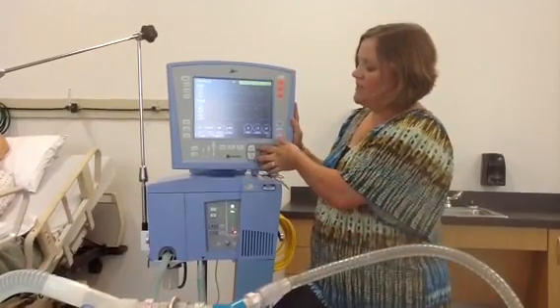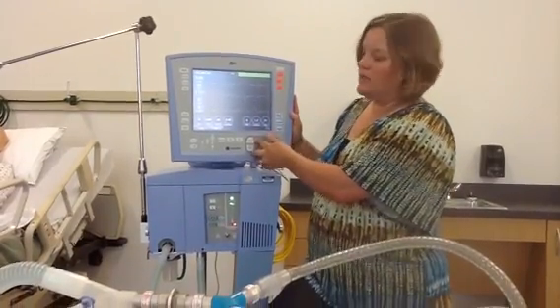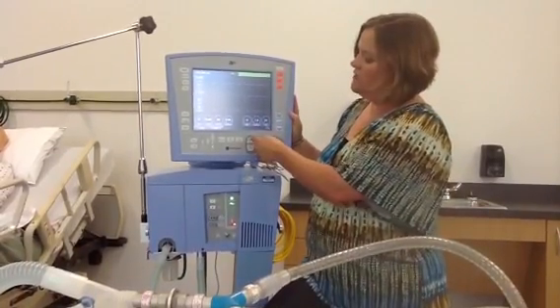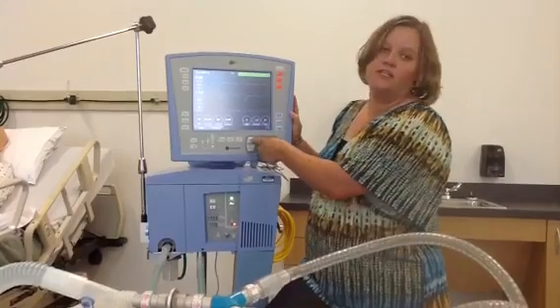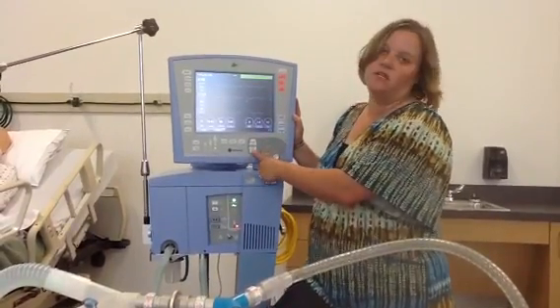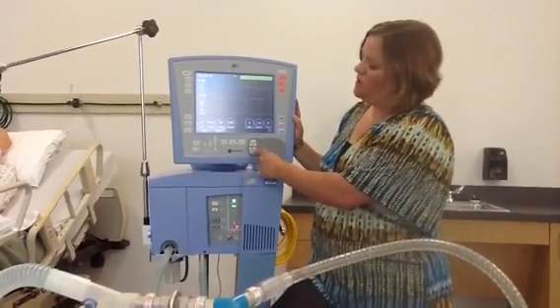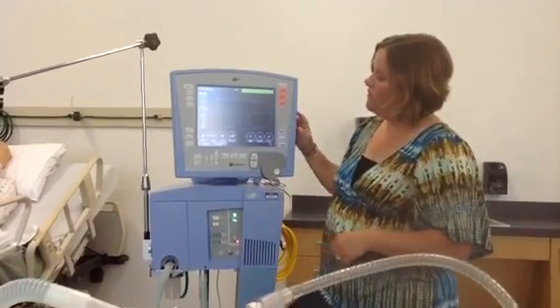The accept and cancel buttons are your very best friends. They either tell the ventilator yes, I want to change that, or you can cancel anything that you're doing. So you always want to know where those buttons are.